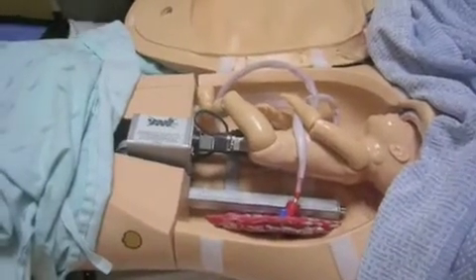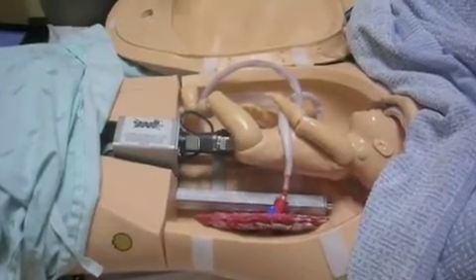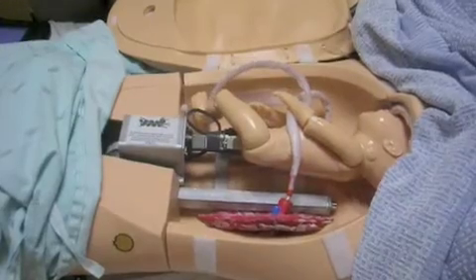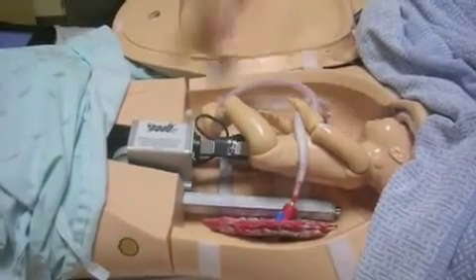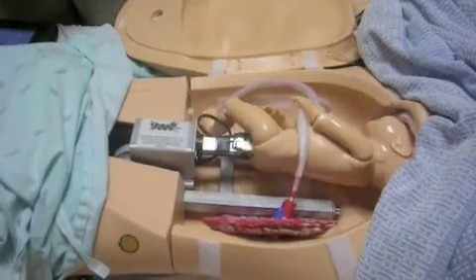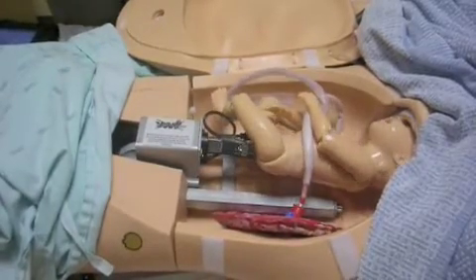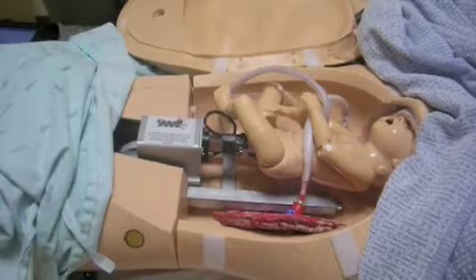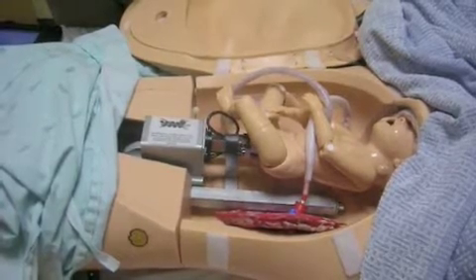We can turn the baby in any angle. We can also simulate a breech delivery where the baby is upside down. We can do shoulder dystocia deliveries where the shoulder actually does get stuck in the birth canal, which can create a crisis situation, which is nice for our teams to train on. Even though it doesn't happen very often, we like to make sure that our staff is trained in how to handle shoulder dystocia deliveries.